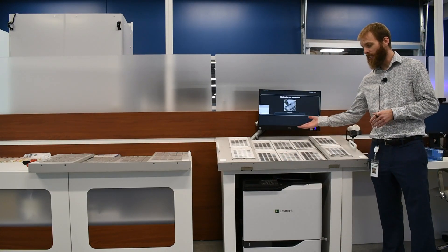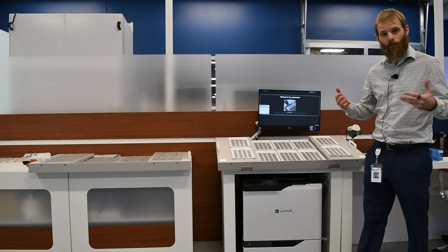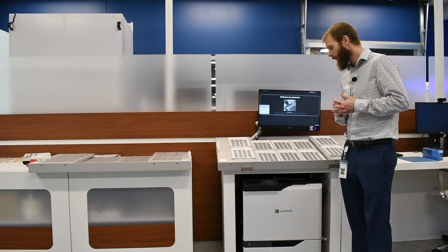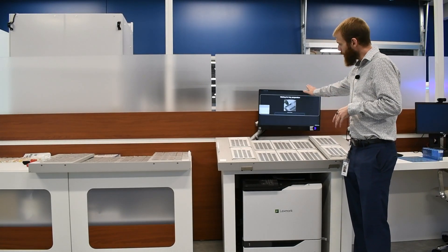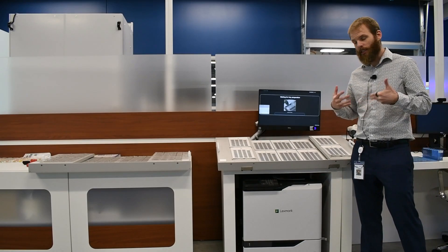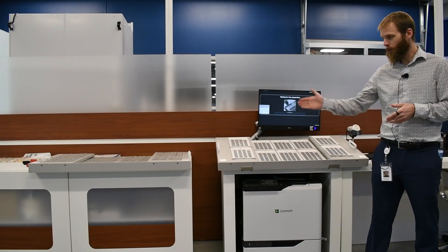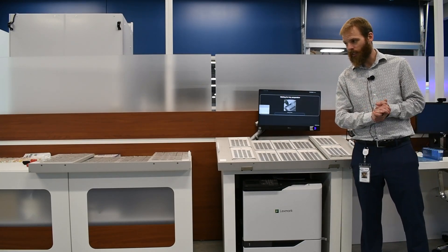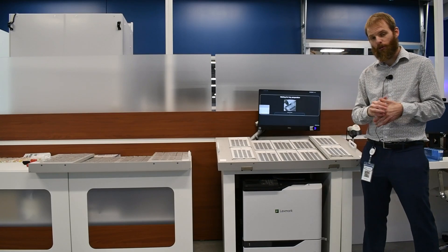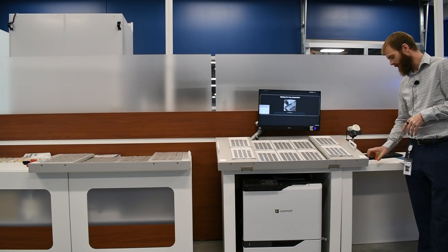Each one of these trays has multiple barcodes on it to help drive the workflow streams that we're going to talk about today. We also have our SynMed Assist PC in the equation, as well as a verification station which would be sitting on that table with the other tray. We'll talk about the workflows as we go through the system.